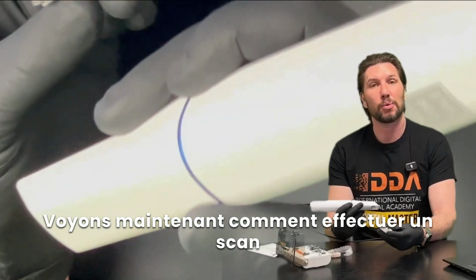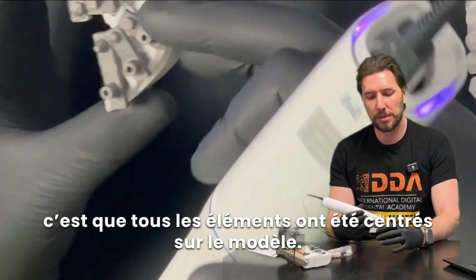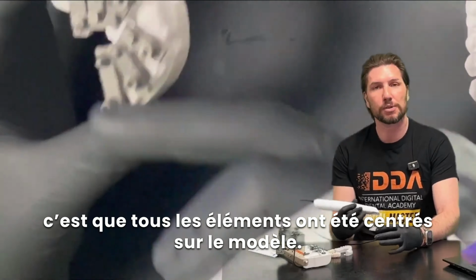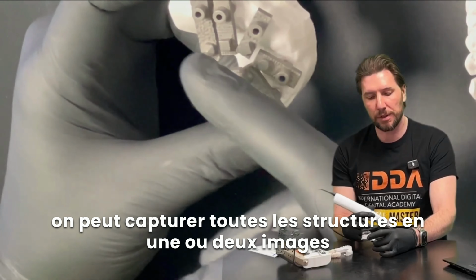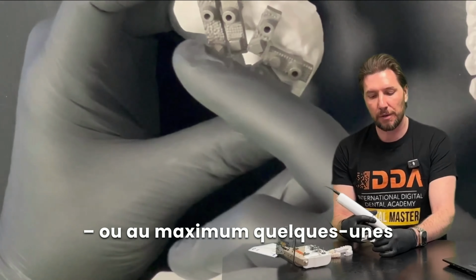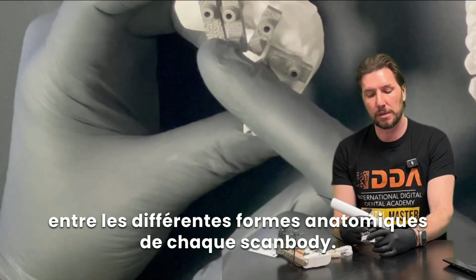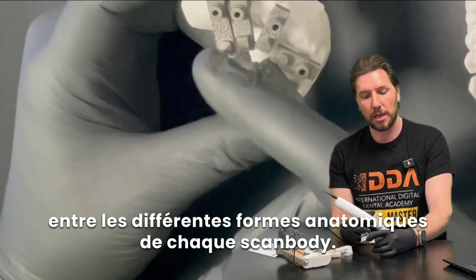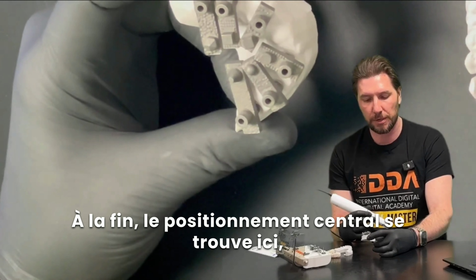So let's look at how we scan using the ScanLadder. The first thing we should note is that everything has been centrally focused on this model. If we centrally focus everything, that brings everything within one or two, or maximum a few, frames for us to have minimum distortion between the pickup of the position of these anatomically different shapes in each one of these scan bodies at the end, centrally positioned here.